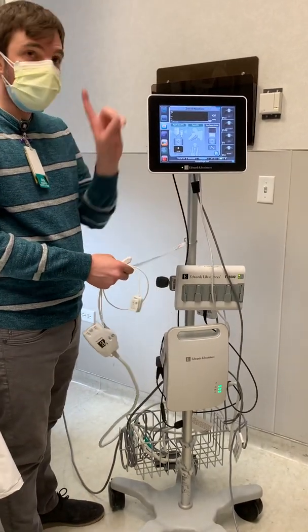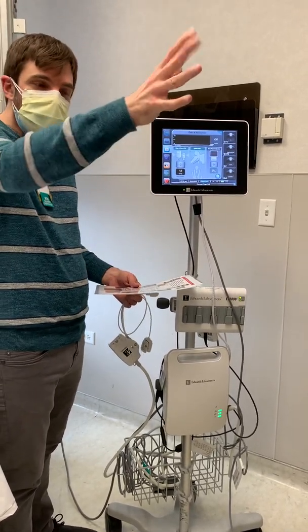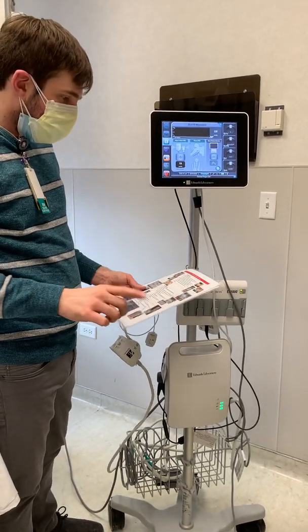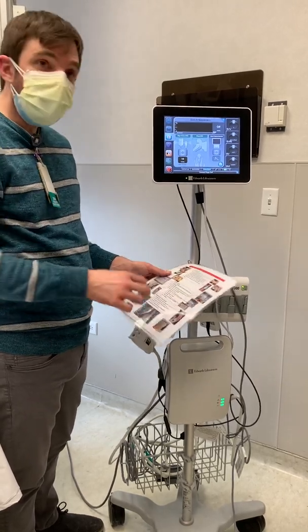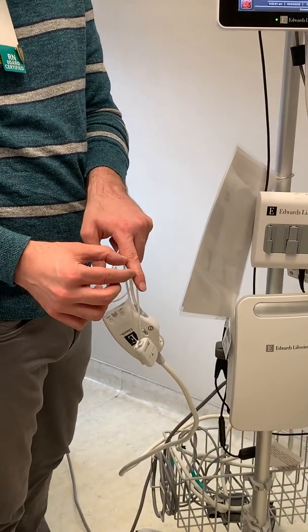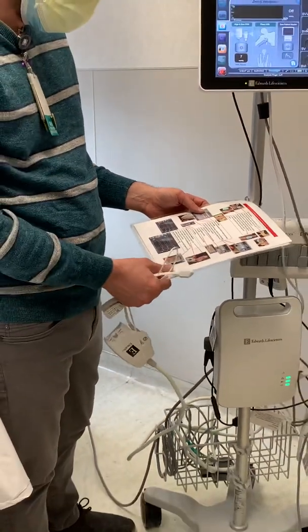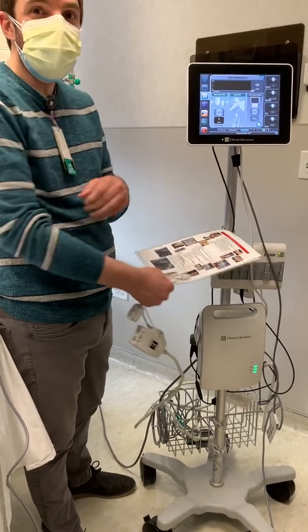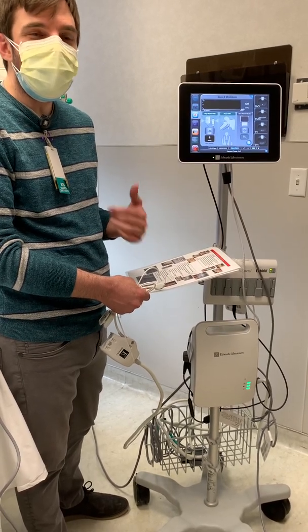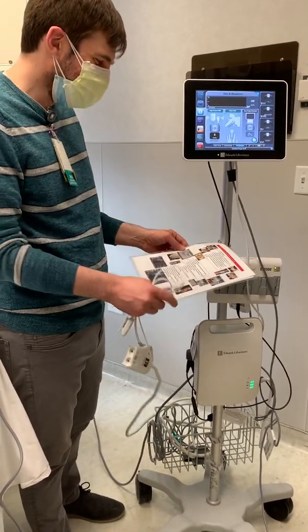The cuffs are kept in the supply room on that metal rack, in a small bin around the second shelf down by the linen cart. You're supposed to measure the finger and put the size of cuff that fits between the first and second knuckles. We only have one size right now because they're super expensive — I think it's like $500 a cuff. Janine only ordered the medium; when she tried to order all three sizes, purchasing told her that would be $50,000 and she said no.